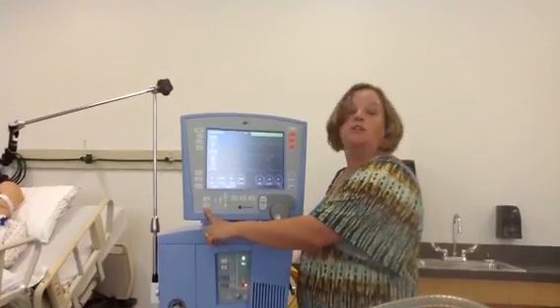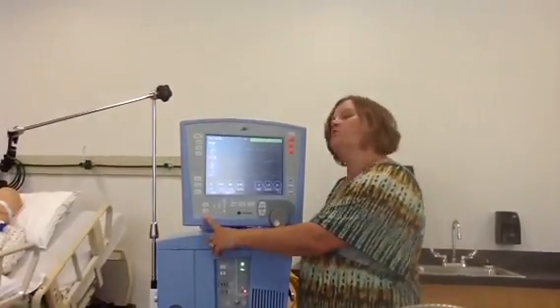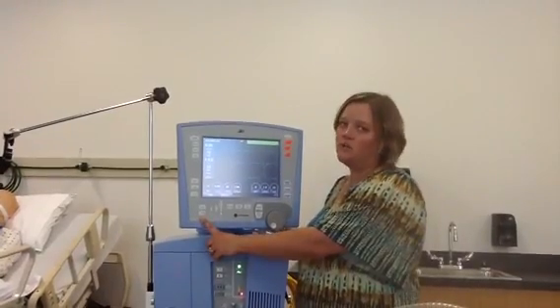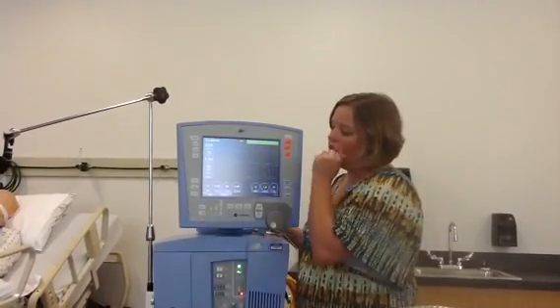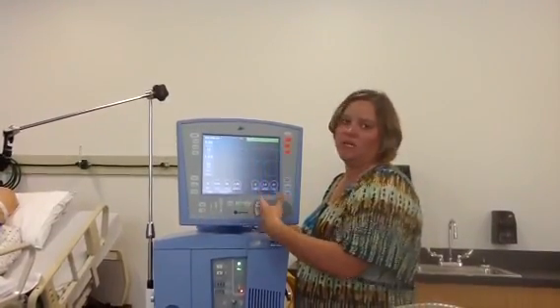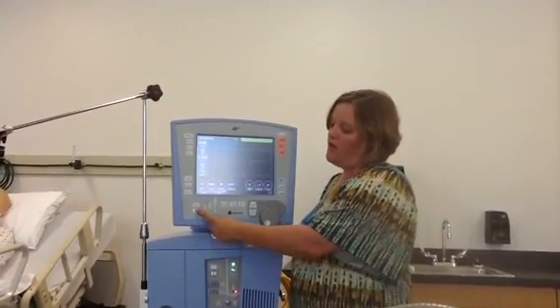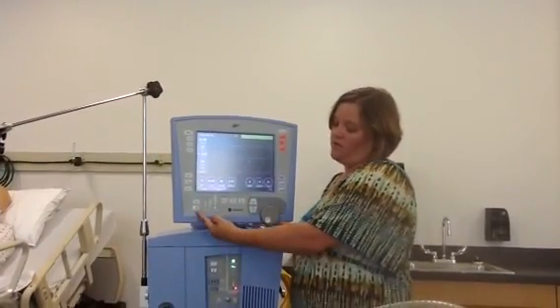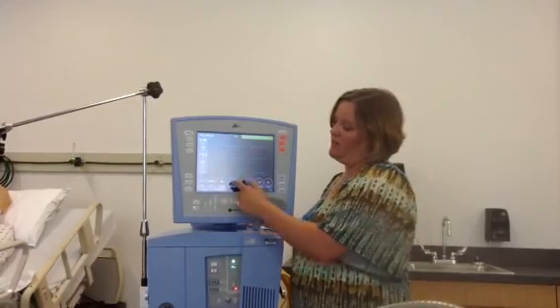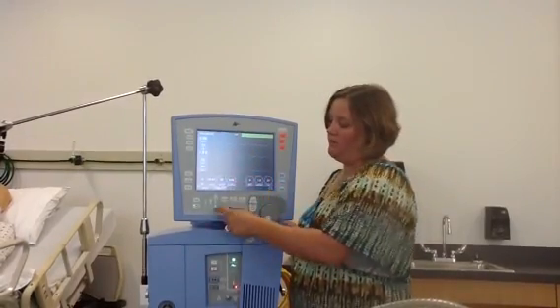You do have the ability to lock your panel. If there's a possibility of somebody trying to touch the ventilator or change something and you don't want them to be able to do that, you can lock the screen. It does say panel lock with a big bright light on it, but nobody would be able to come up and change anything.